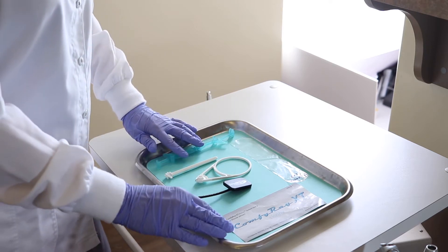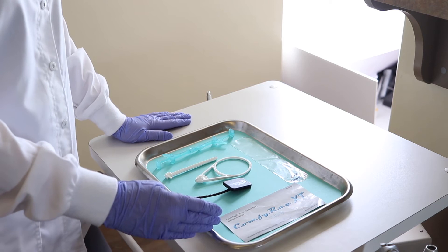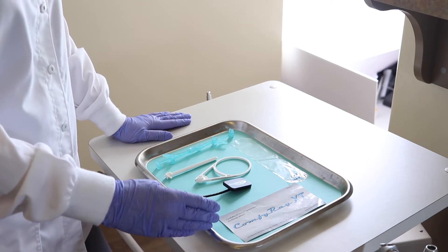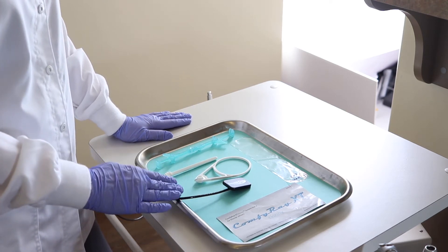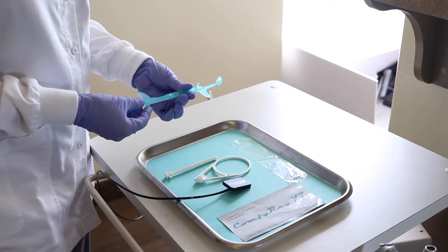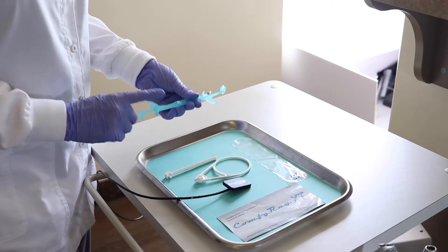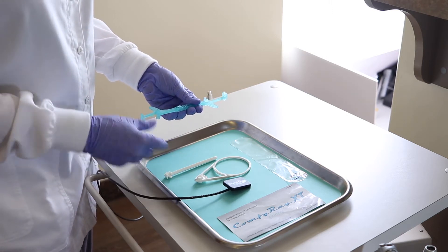Hi, my name is Susan Bateman and today I am here to demonstrate the ComfyRay XT Skinny. It is one of two holders that you receive when you purchase your Dentimax sensors. This is a newer version of a holder called the all-in-ones. You can take a full mouth x-ray, full FMX, using these three pieces right here.